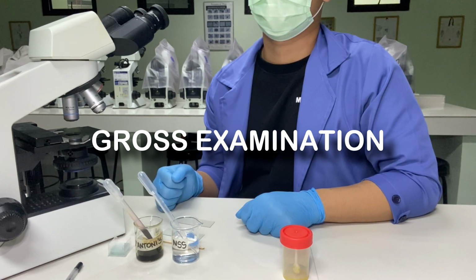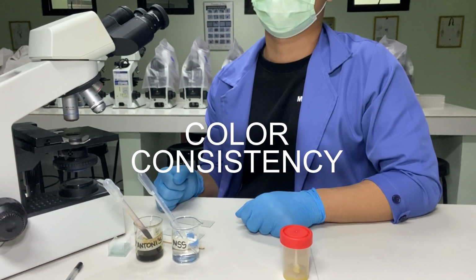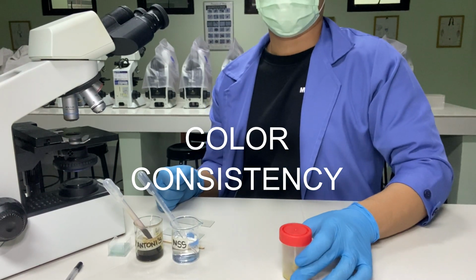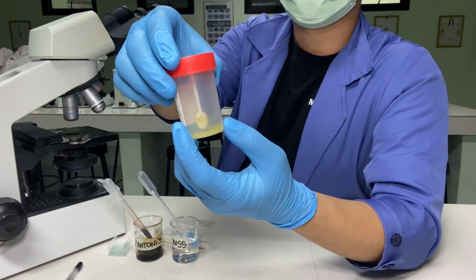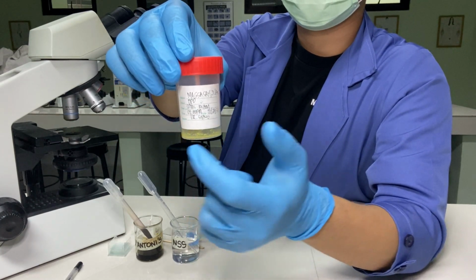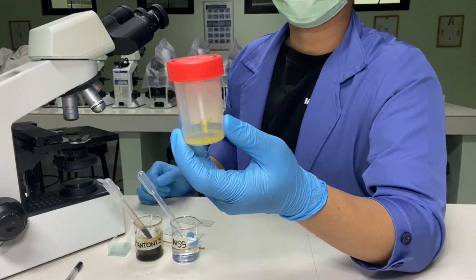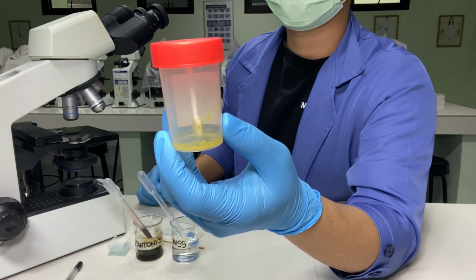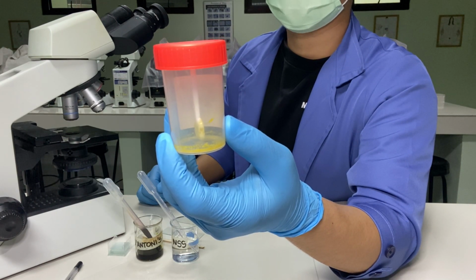The gross or macroscopic examination of stool specimen. In this activity, we will be looking for two things: the color of the stool and the consistency of the stool. Gross examination of the stool specimen may also provide the opportunity to recover tapeworm proglottids or adult worms, in particular Ascaris or Enterobius, from the surface of the specimen or in the container. Tapeworm proglottids may be found on or within the specimen.